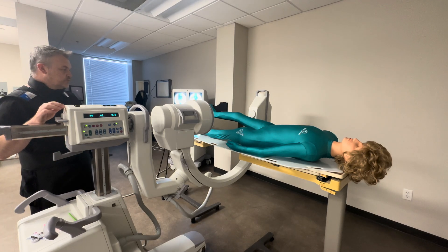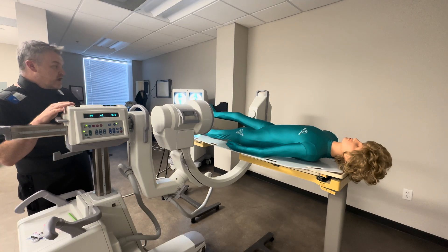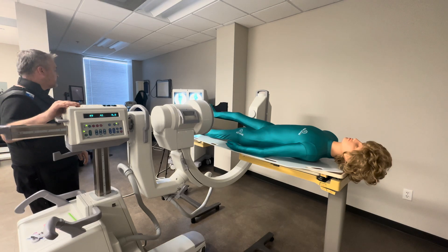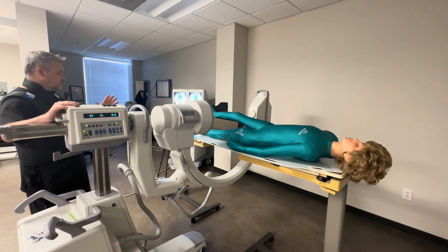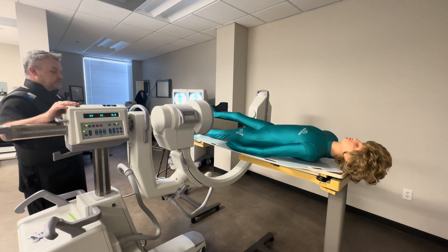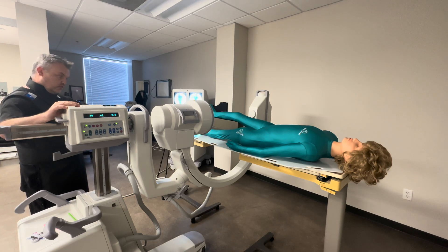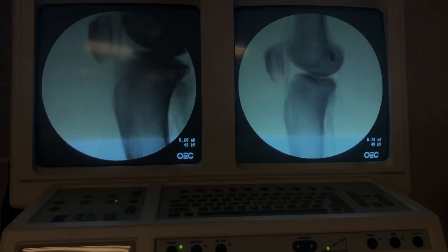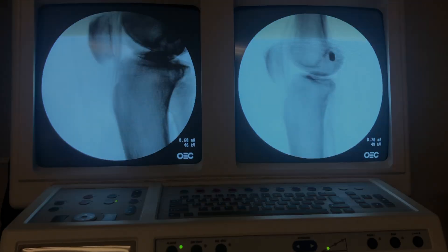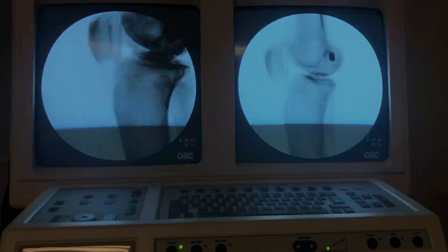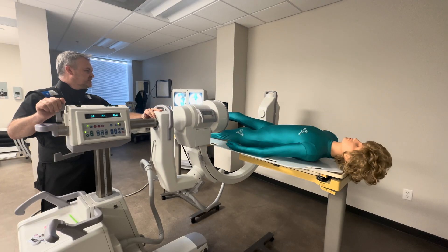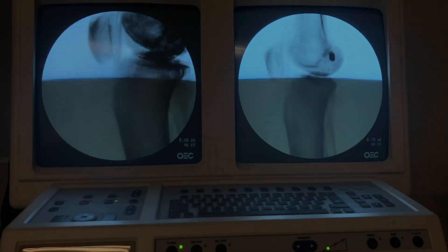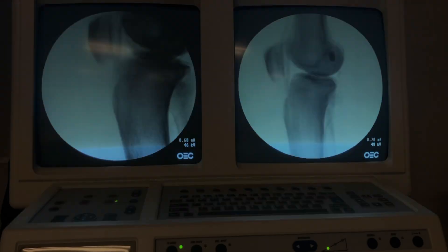Let's look at some possible error scenarios. So let's take a lateral. My C-arm is wagged and my rotation is all the way flat. Let's go ahead and get this knee joint in the center. I'm going to reduce my distance so the image is a little bit clearer to see.